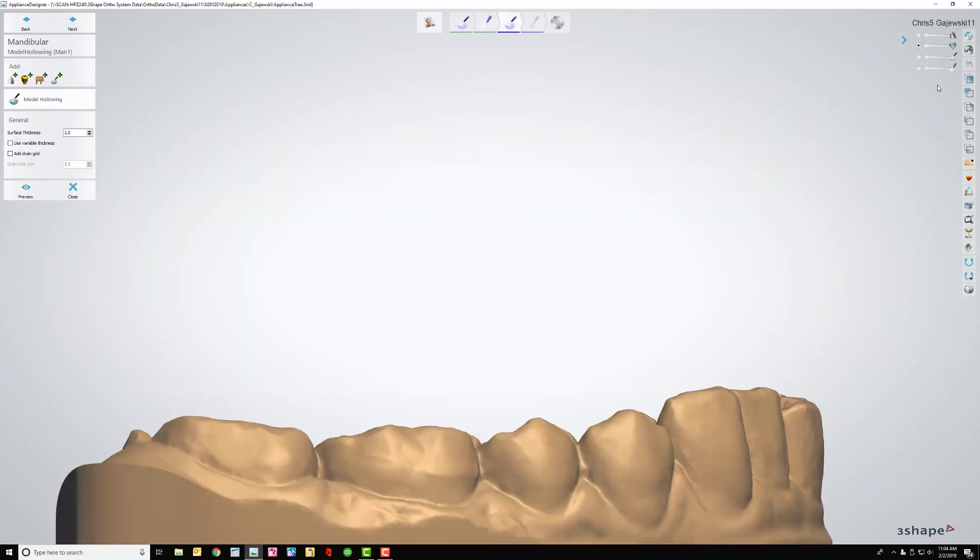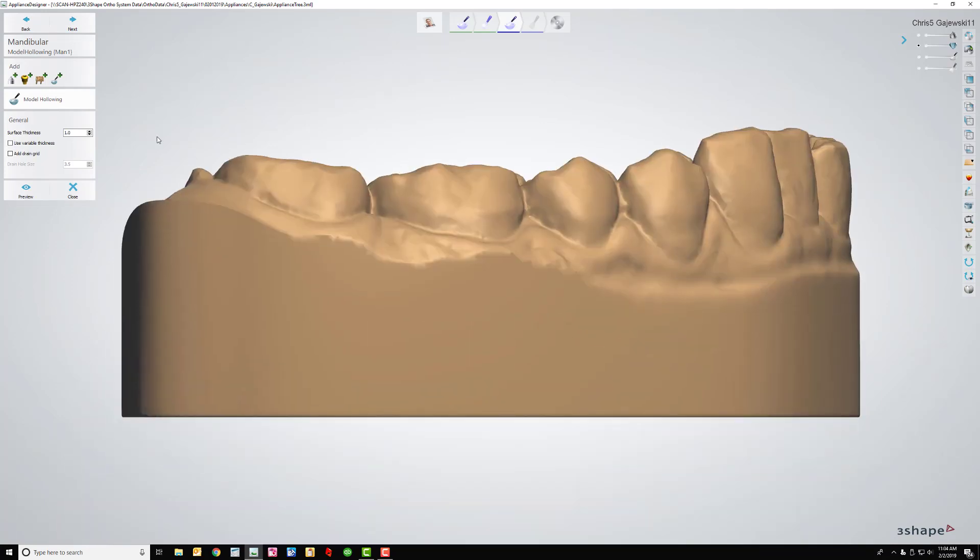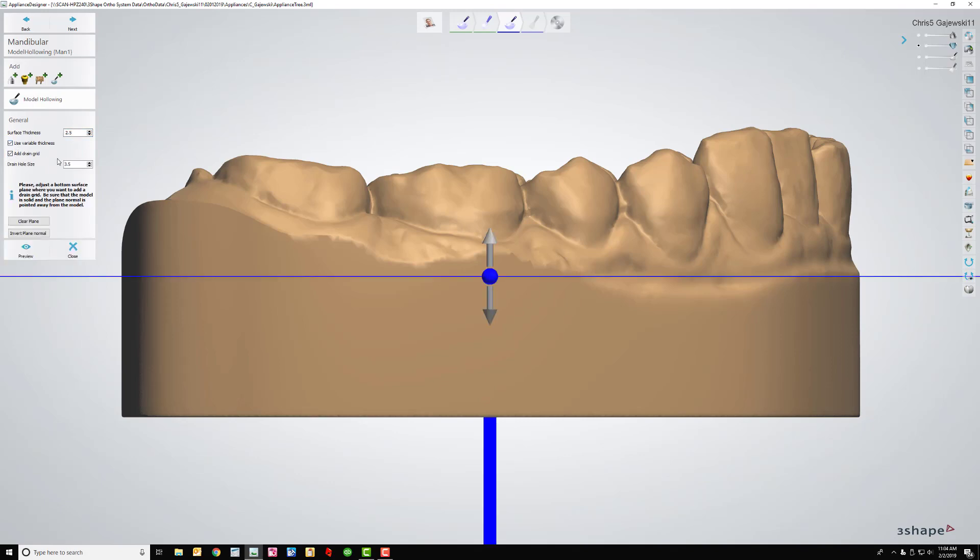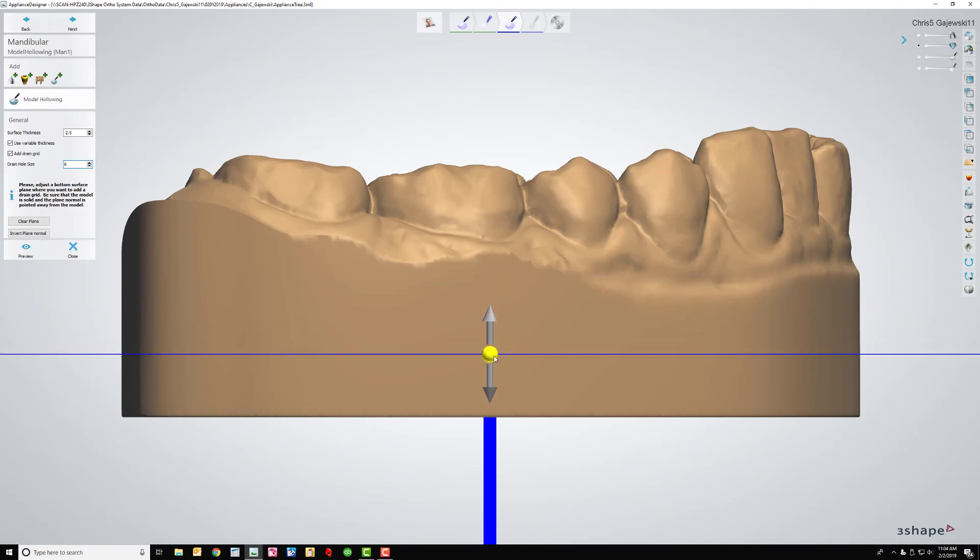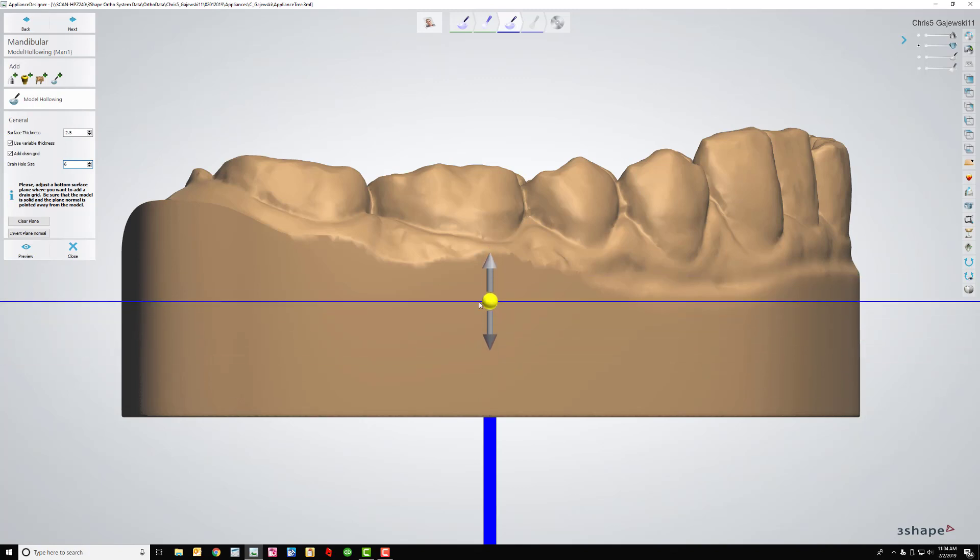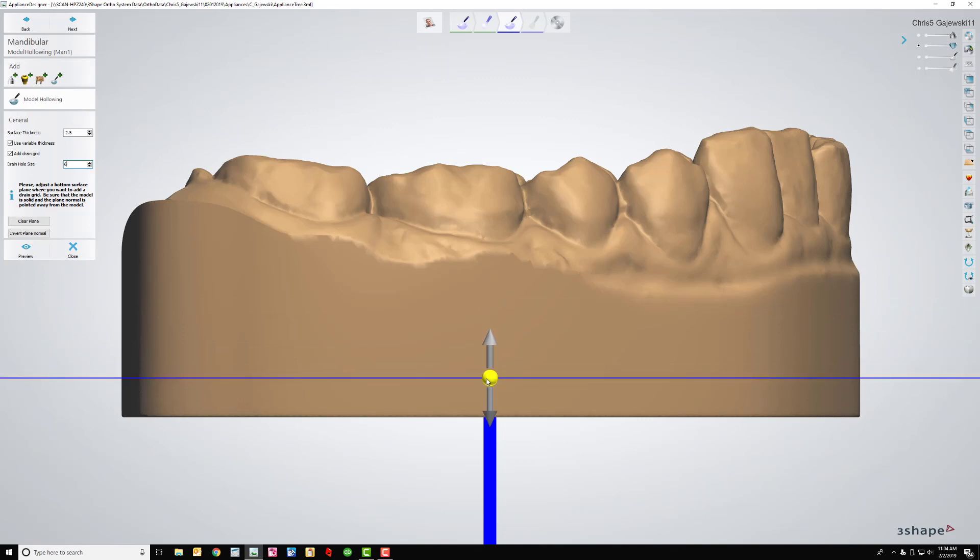It's going to bring me up on the lower. Pull that into place, and then I'm going to do the exact same thing that I did with the upper. Variable thickness, add drain grid, 6, pull that down. If you leave this up too high it's going to create very thin walls. My employee asked me why, and I answered honestly, I have no freaking idea. Next.